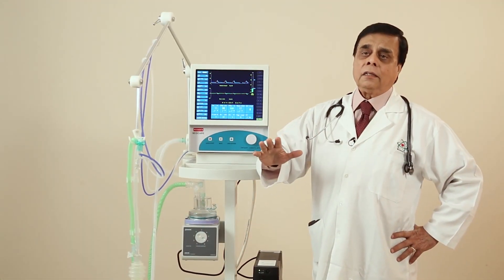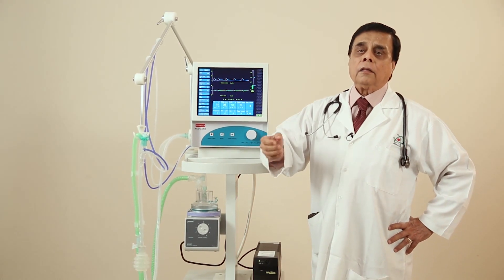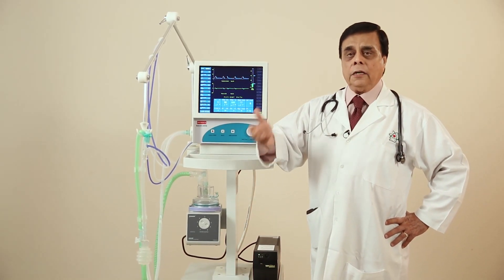The work of breathing never rises. But even then, if the patient needs a little bit more ventilation, we have incorporated a sensitive demand valve. With a small additional demand from the child, the ventilation will be adequate. We have done a pressure control preference.